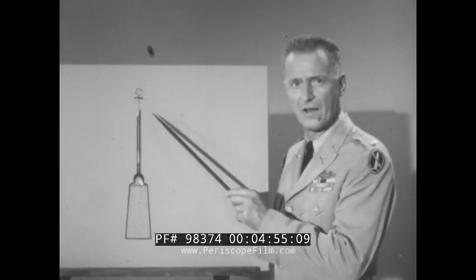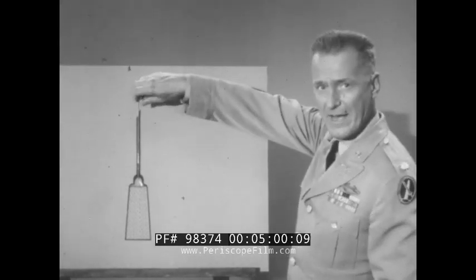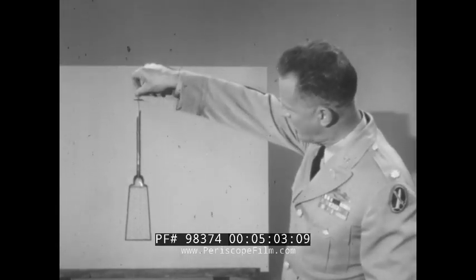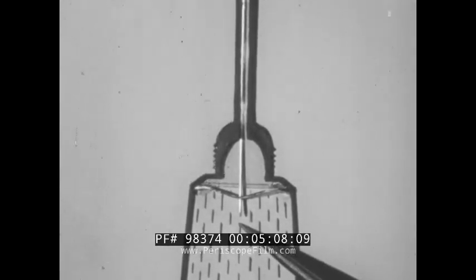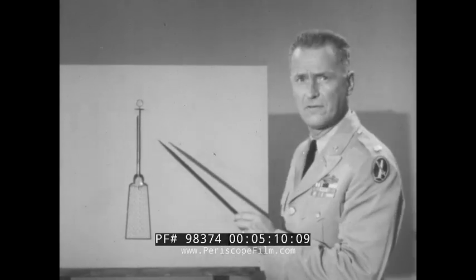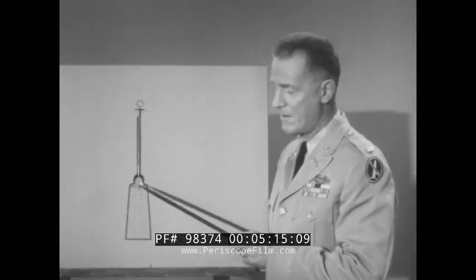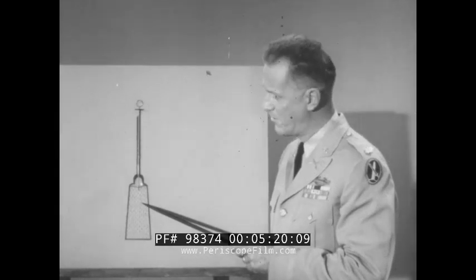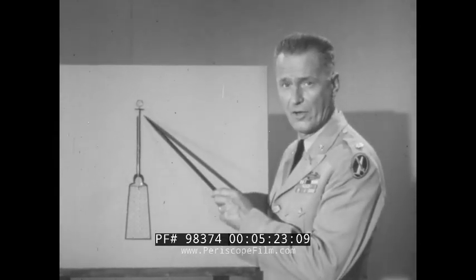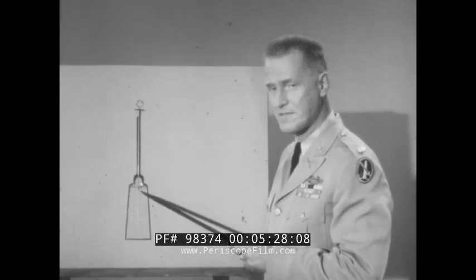Next, push the wire stylet into the seal with a firm pressure and with a twisting motion like this. Continue the pressure on the stylet until you feel the seal give way. But don't discard the wire stylet yet, even if you think you felt the stylet puncture the seal. Make sure the seal is broken by squeezing a drop of liquid from the tube up to the tip of the needle. Only when you see that drop of fluid at the needle point can you be certain that the seal has been broken.